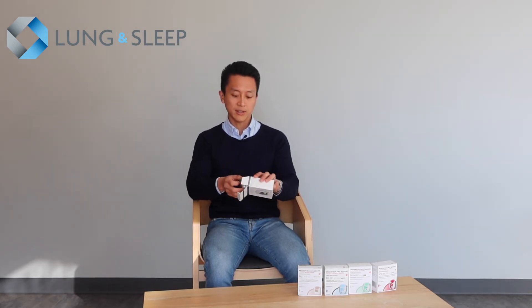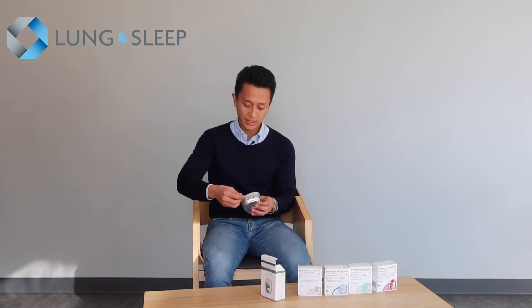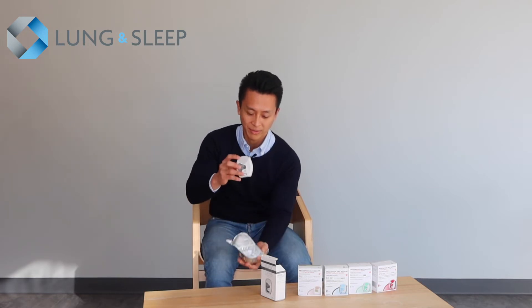When you receive the device from a pharmacist, it will come in a box such as this. You open the box and in it you will see a waterproof packaging. There is a flap at the corner and you peel it off like you would a tub of yogurt. And this is the Ellipta device in the packaging.